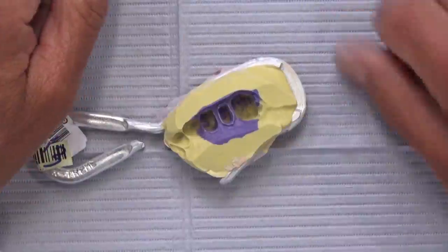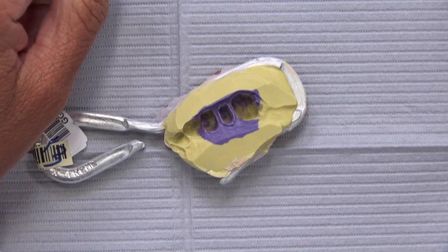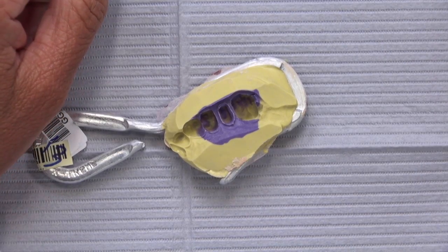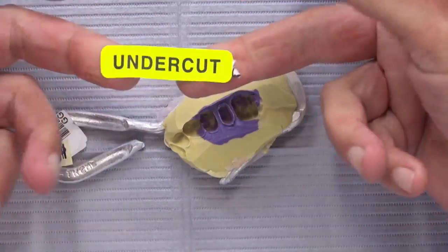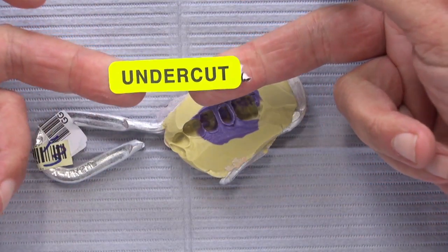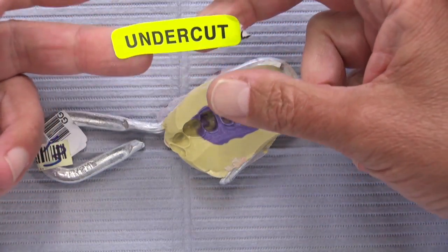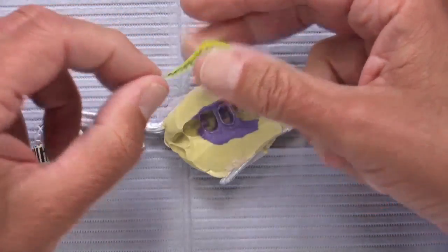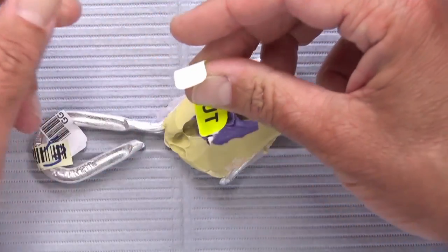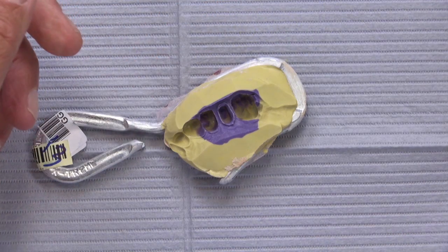As you may recall from other episodes of Case of the Week, there are certain stickers you never want to see on your box when it's in the lab, and here's one of them: undercut. This is the summer of the undercut — we've been talking about this a lot. It's not that it's anything new; it's just that we have a new way to look at it and evaluate it.